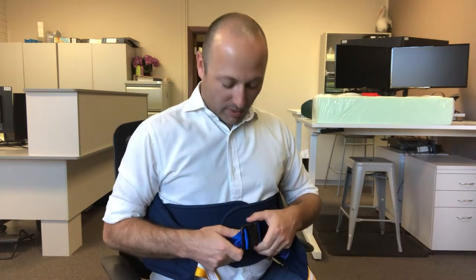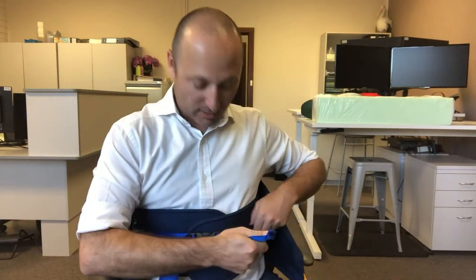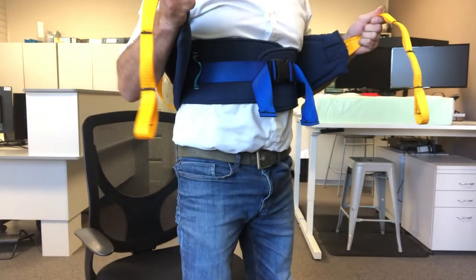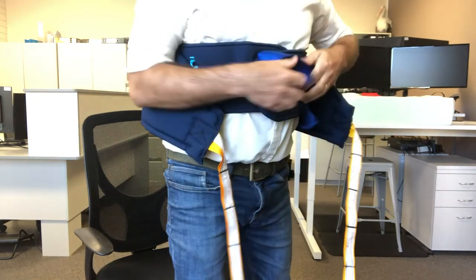So the idea we're working with is this adjustable buckle, and I just want to show - whenever you're doing up a buckle, don't just pull from one end, try and push in as well and you'll get it nice and firm. Same from the other side, and then once you're standing up the carer can then adjust this again without the need to undo it.